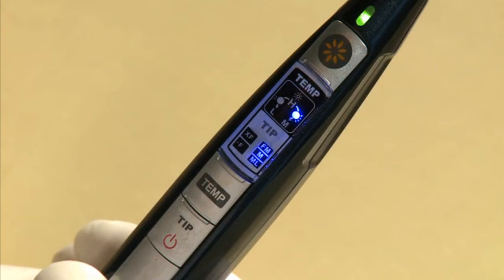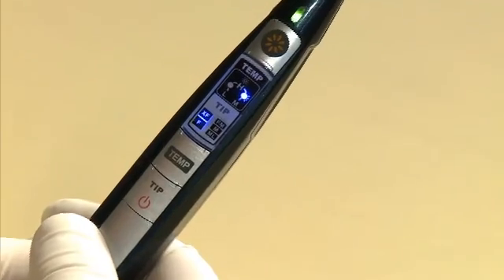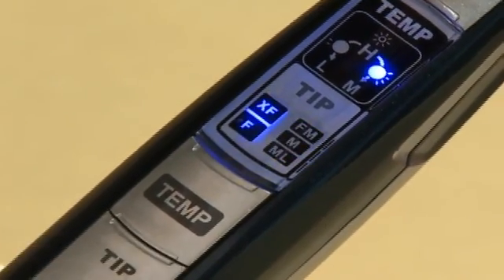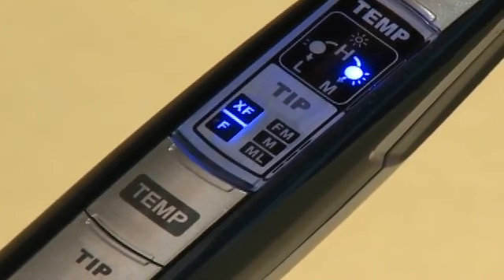The ML indicators will light up. If the tip size is not set properly, the temperature will not be correct for your intended use. Please make sure that the tip size displayed is the size you intend to use.